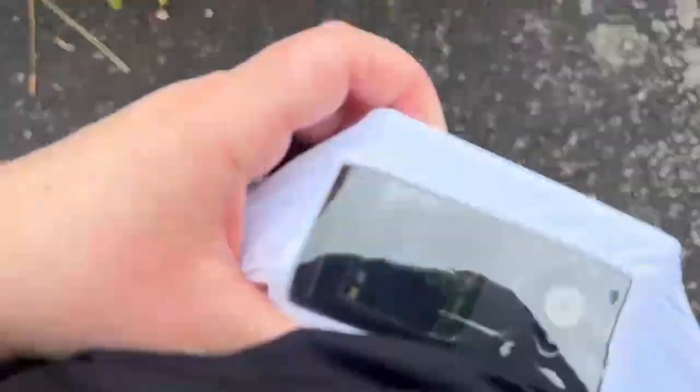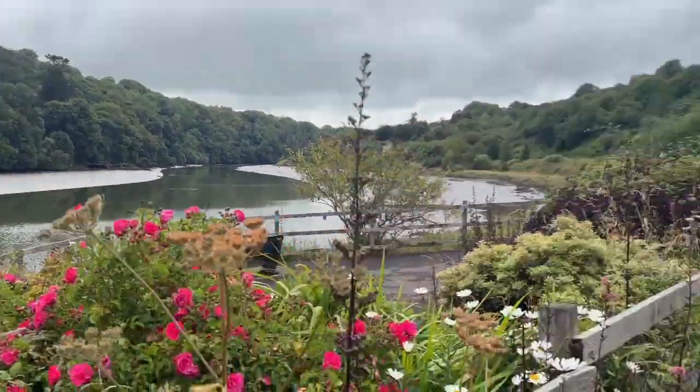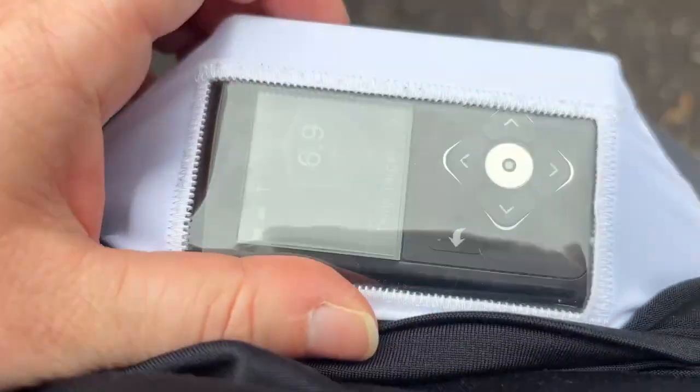It's really hard to run when you're high, so I hope I don't go high. I'm feeling positive today. It's raining outside which is the worst thing. If this run goes right we can end the video on a successful run and I'll know I have a method. It has taken a while to get here. I also have my water and a run of 3.8 kilometers today — the longest yet. Halfway through the run I wanted to show you — I'm using this case with a window. I'm at 6.9 and the temp target is still on.